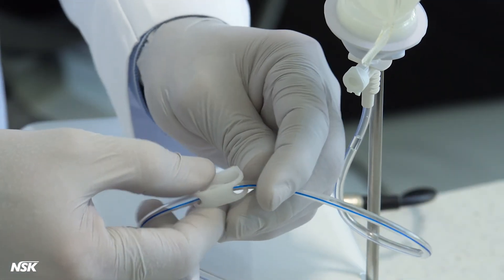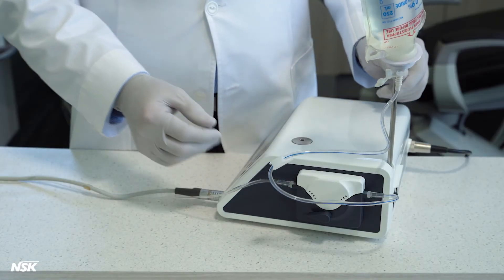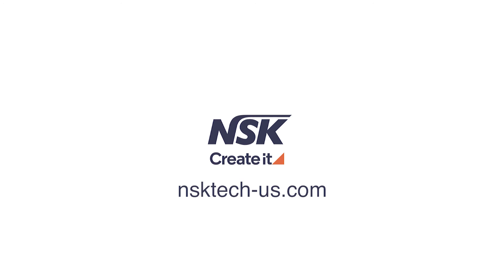Open the tube clamp and the air cap. Your Surgic Pro is ready to operate. If you have any further questions, please visit our support site, nsktech-us.com.